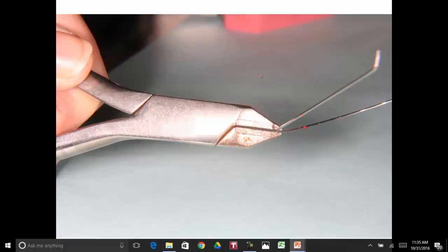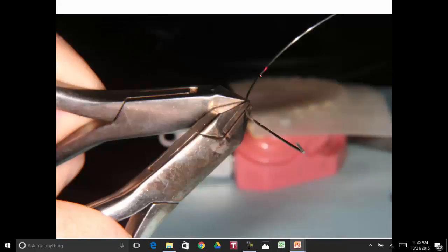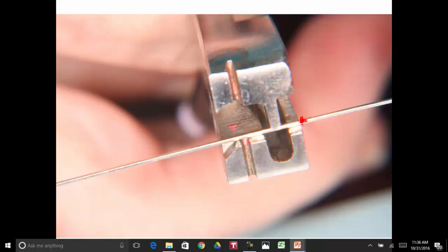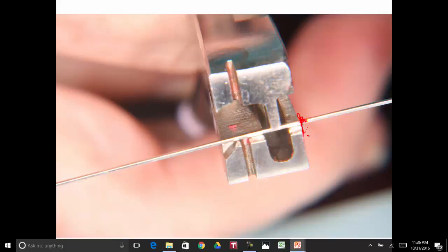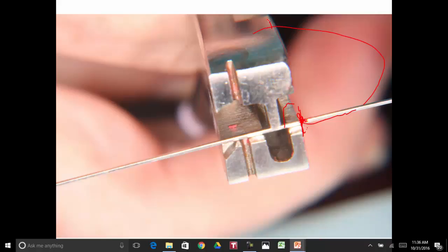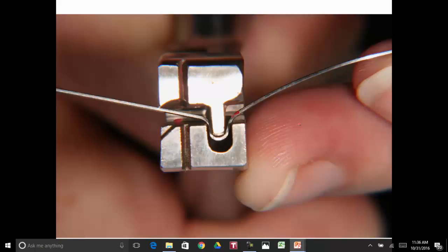These wires have torque in them, so just ignore this for a minute. Now, you mark the omega where you want it. You put a little red mark on the archwire, and you set this right up against the mesial. That's going to be the mesial part of your omega, and the archwire will be going around like that. Here we stick the wire in there. We've got the mark out here, and as you crimp it, this mark will be on the mesial part of the omega.